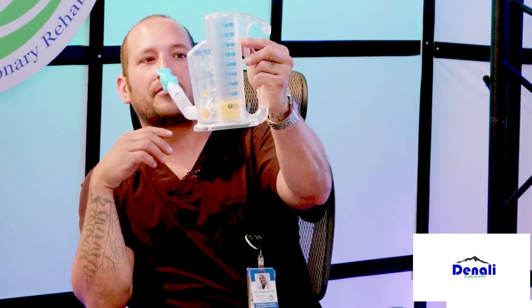So I put in 47.7 — rounding up to 48 — and type in 48. So 48 times what? 65 — because it's 65 milliliters per kilogram of ideal body weight. So I took 105 divided by 2.2, which gave me 47.7, rounded up to 48. So 48 times 65 equals 3,120 — that's what your volume should be at. That means on your incentive spirometer, if you see the 3,000, you just have to be above that — 3,120. You can round down and just say 3,000.